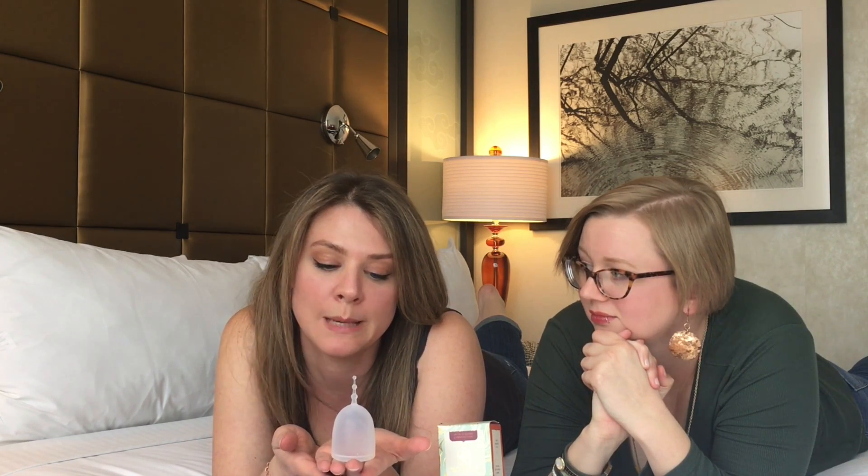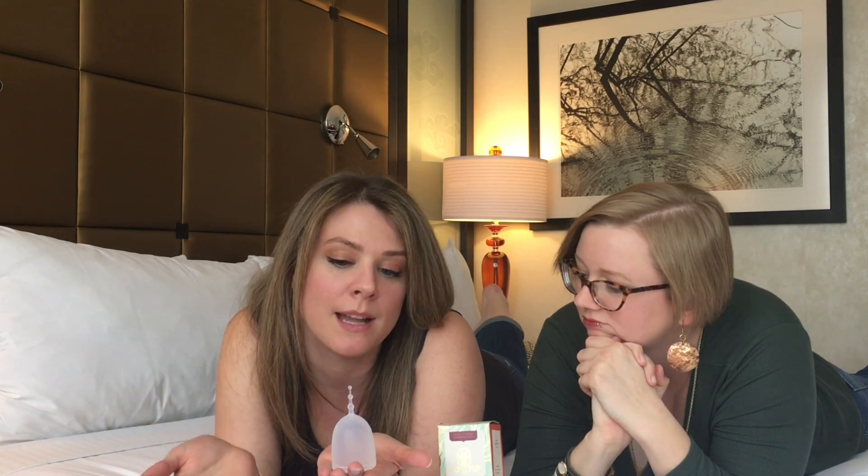It's sort of like a little butterfly, but that helps the cup pop open also. It does look a lot bigger than a lot of the menstrual cups you've probably already seen — a little intimidating. Even as someone who has used a lot of cups, I first thought this was a pretty large cup. But surprisingly it's incredibly comfortable and I didn't feel it hardly at all, and I say 'hardly at all' because I left the stem on to try it. I always chop my stem off but I barely felt it, and I think part of that's mental.